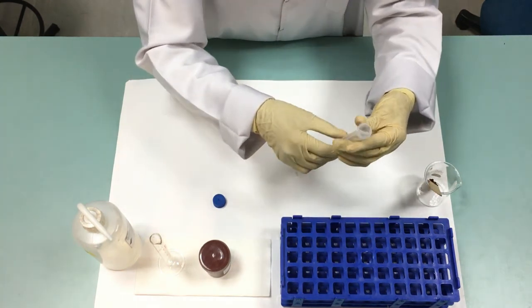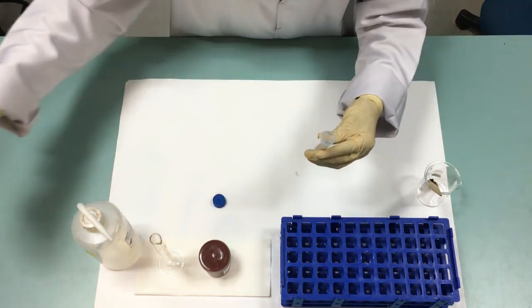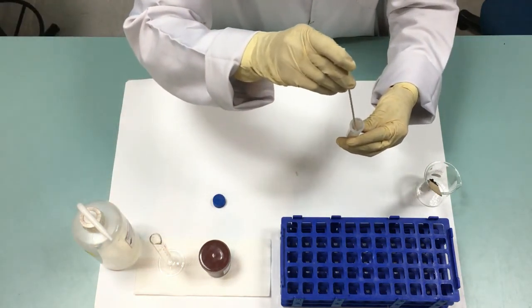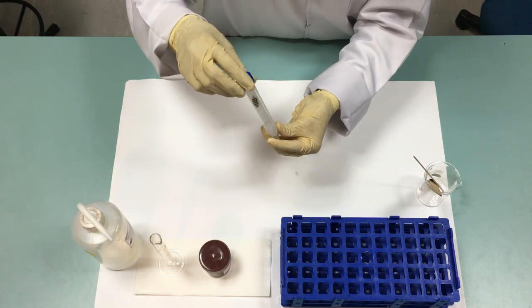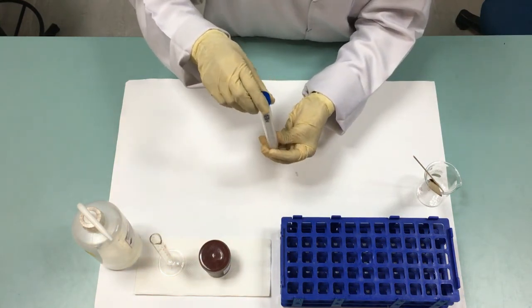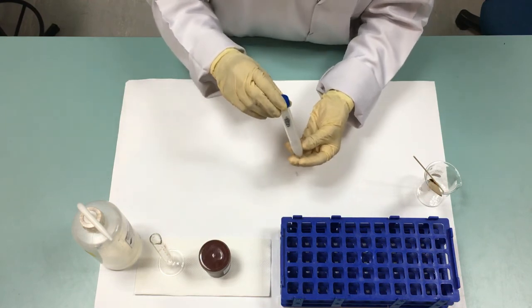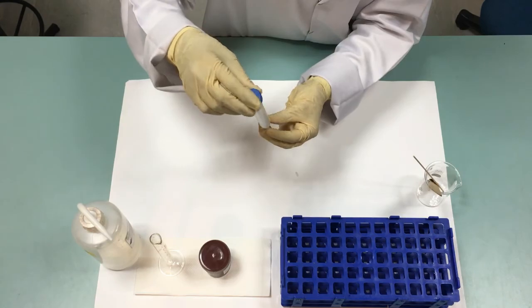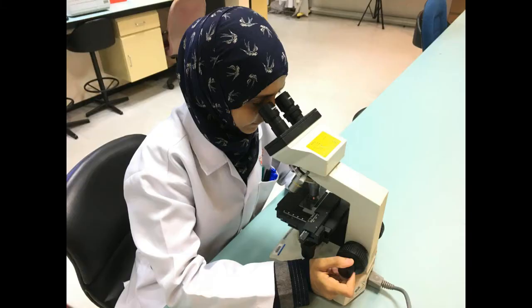Make sure that the water level is slightly 0.5 inch below the fecal spot. Add distilled water to maintain the original level. Usually evaporation takes place over the first 2 days, but then the culture becomes stabilized. Keep the tube for 10 days and examine the morphology under the microscope.